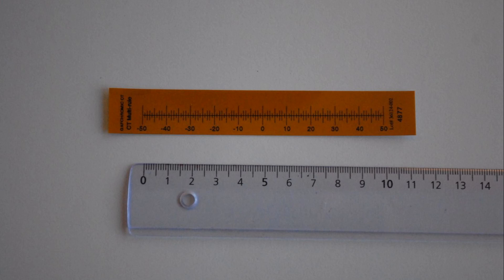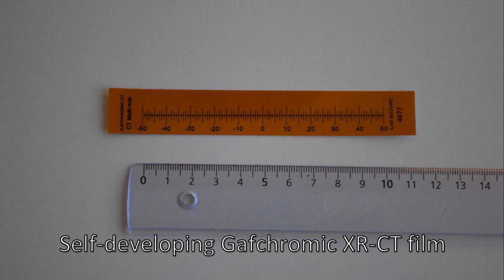We will now look at the measurement of beam collimation. For this, you will need a strip of self-developing Gafchromic XR CT film.